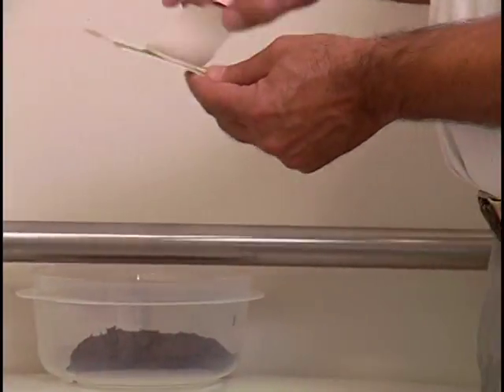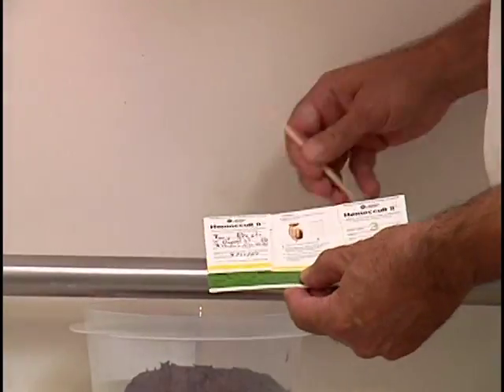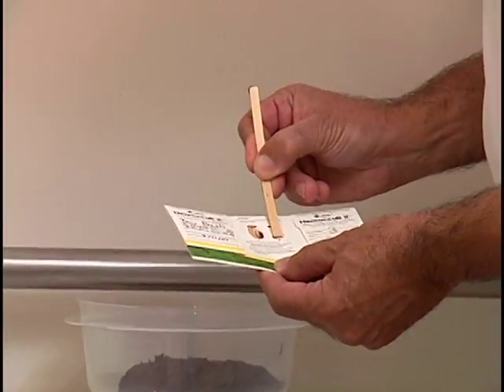Repeat this procedure the next day for the second bowel movement. If you do not have a bowel movement on the next day, then collect the specimen on the following day. Use the cardboard slide located in the middle of the series of 3.